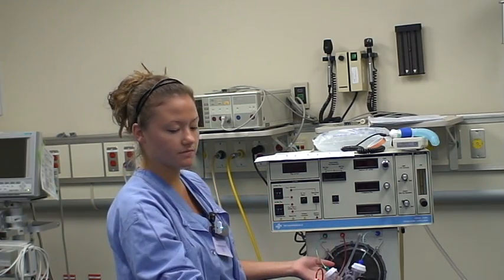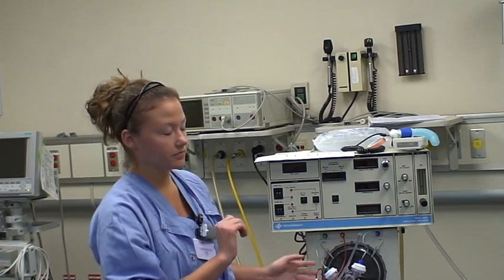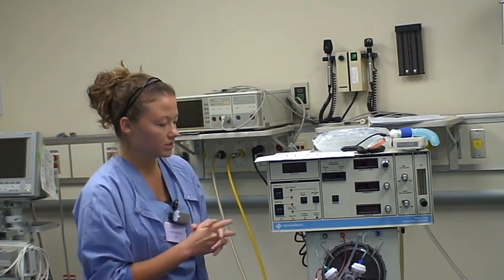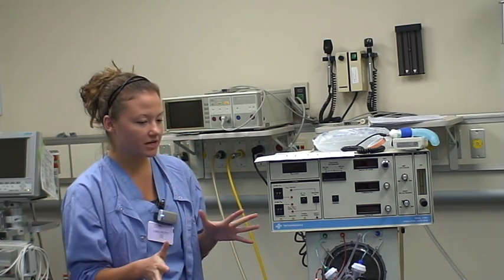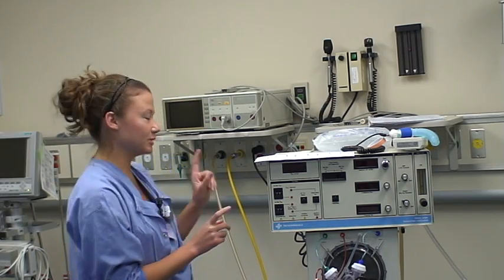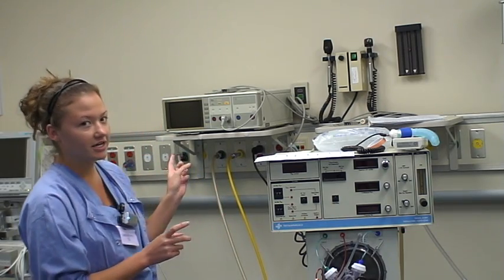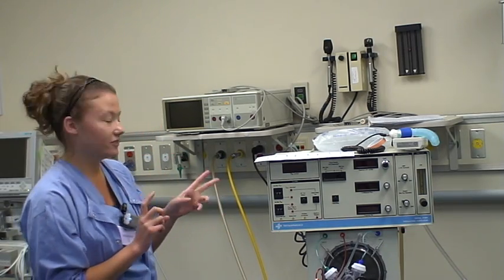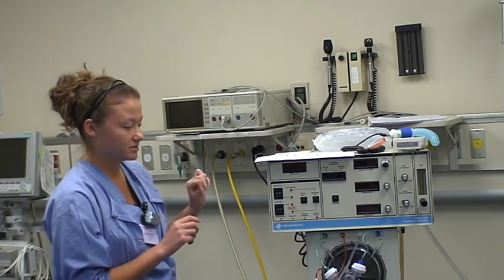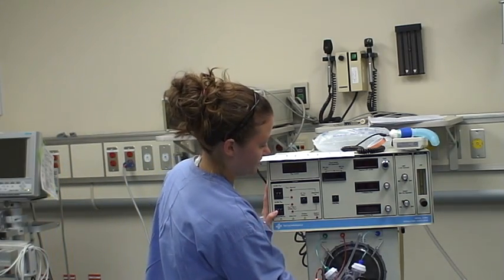This whole arm is dead space. When setting up the oscillator, the first thing you want to do is plug it into an electrical outlet along with the oxygen and air hoses. The next thing you want to do is turn it on.